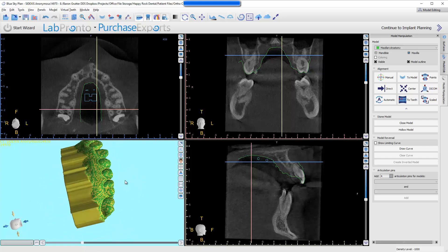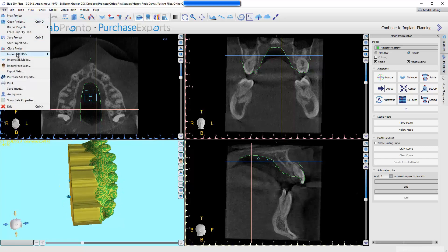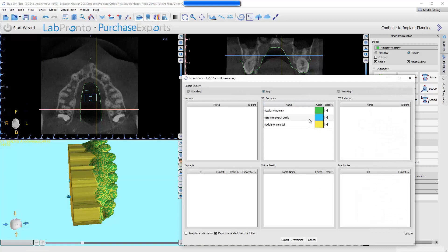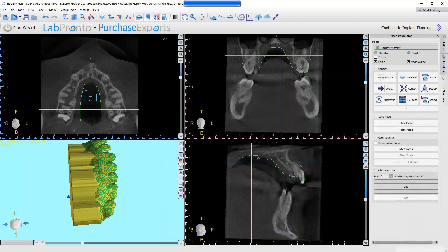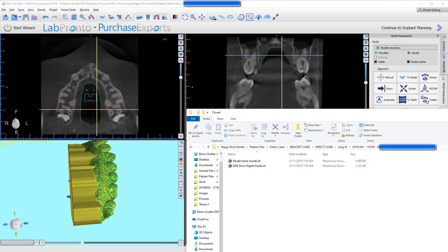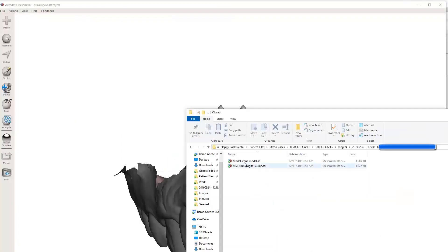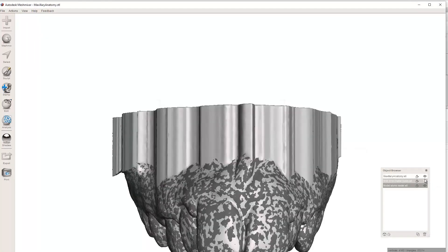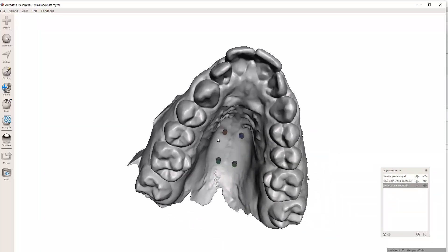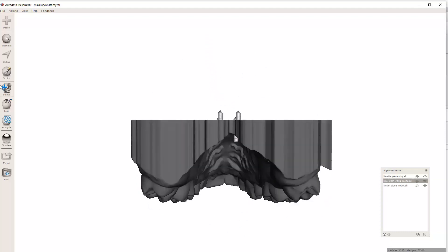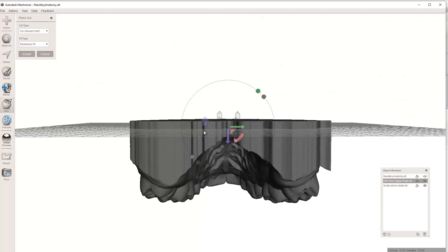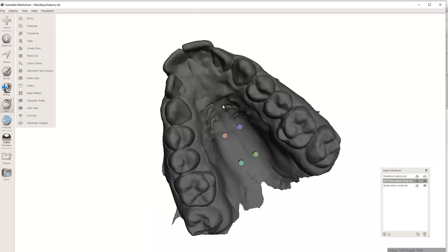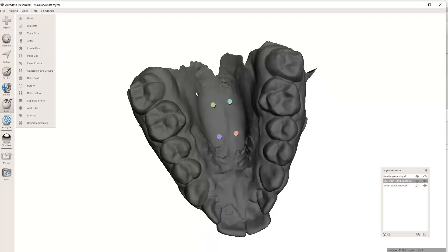Now, if I had sent this one instead, let's just go ahead and do that again. Export data. Now, I'm going to turn off the green one, and just the stone model, the yellow one, and the appliance. Export. I'll make a new folder. I'll just call it closed model. For comparison's sake, I've got this closed folder right here. Let me just drag and drop the stone model in here, so you can kind of see the difference. Now, we've got the pins sticking out of a closed printable model. And if you're thinking, well, what do I do about these? I can just hit edit, plain cut, and just cut them right within the model. Hit accept. And now, this whole object should be easily printed as is, and they can go to town.